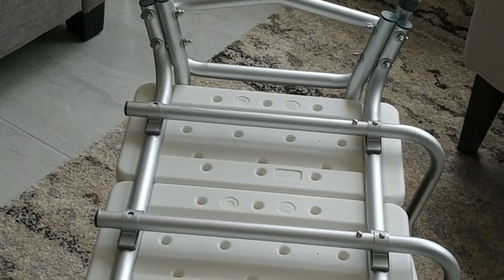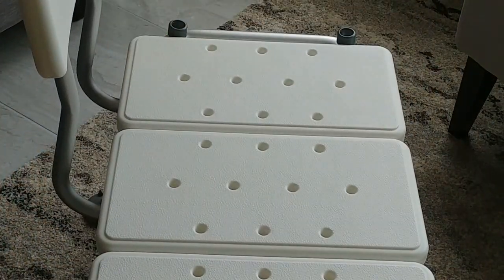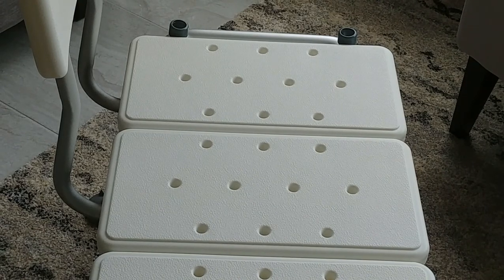From there, you'll just pop the armrest on once you turn the bench over — like so. The armrest will go down at the far end at the top of the screen, and you'll be all set.